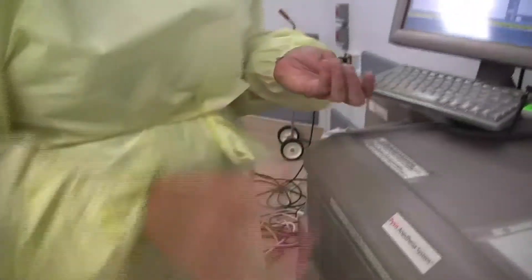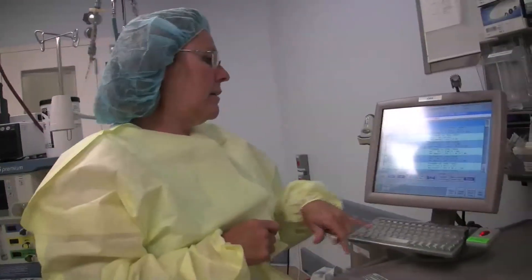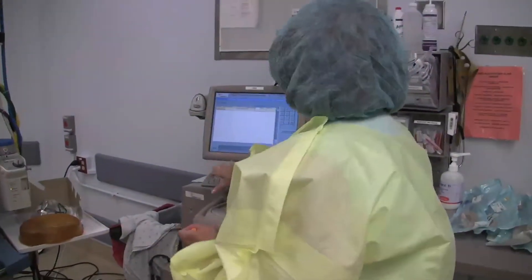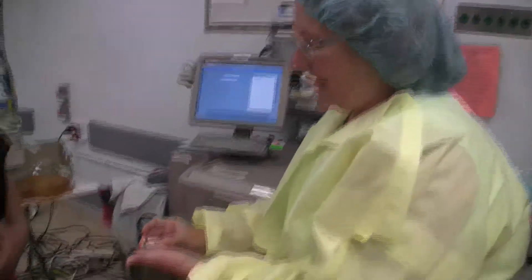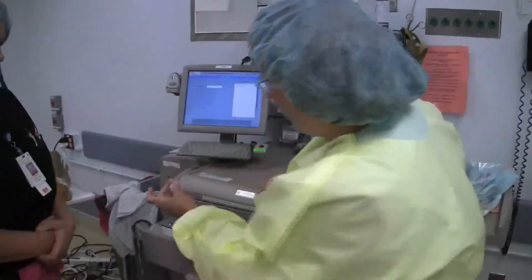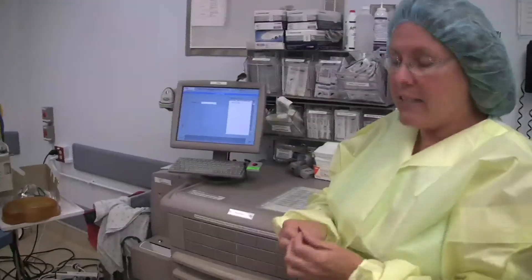I have to remove this and shut it. Now I'm done with this particular process and I'm going to go to main menu. By now I have this morphine in my hand and I need to return it to the system. I'm going to hit return — one vial. And that's where my colleague has to see that I have a bottle of morphine and that's what I'm returning. She has to witness that I am returning it, so it's not one person saying they're putting it in this mailbox — it's two people agreeing that that's what I put in there.